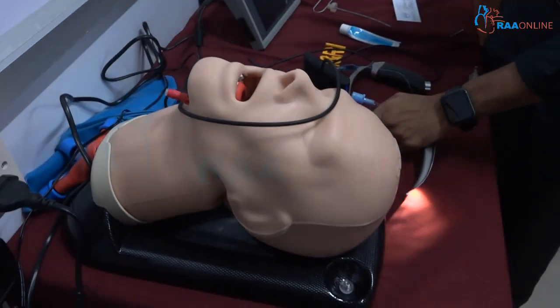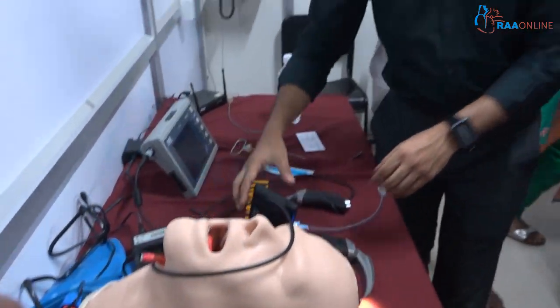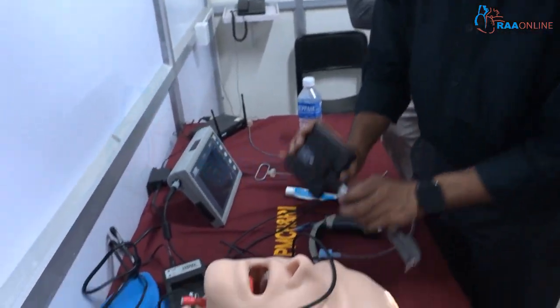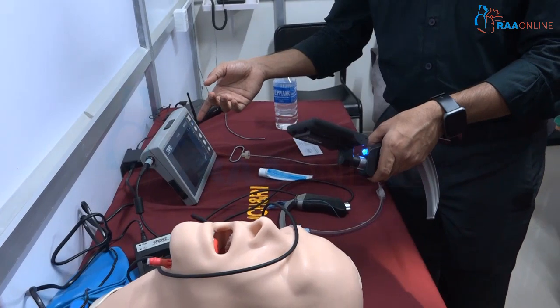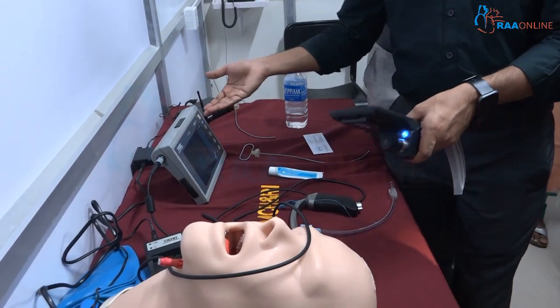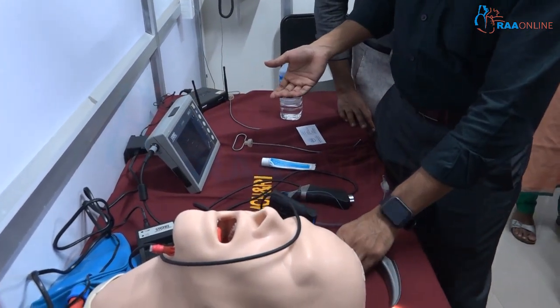You can try now, and you can even switch to the screen view if you prefer. You may have already done some of these before, so go ahead.